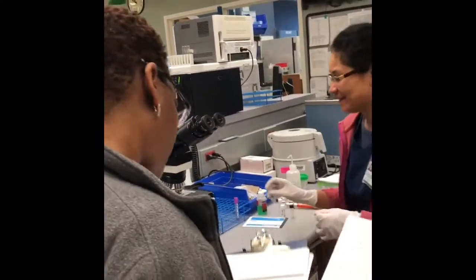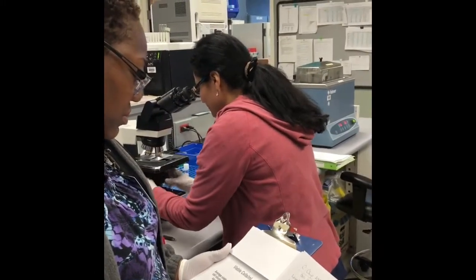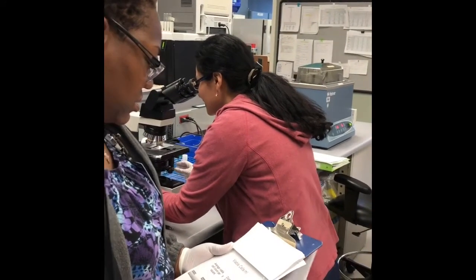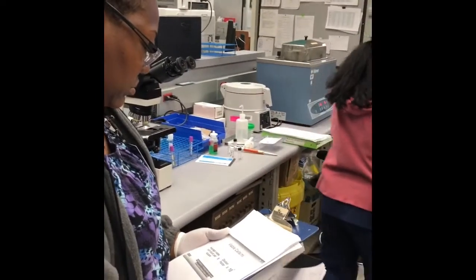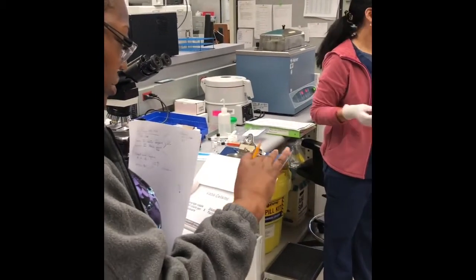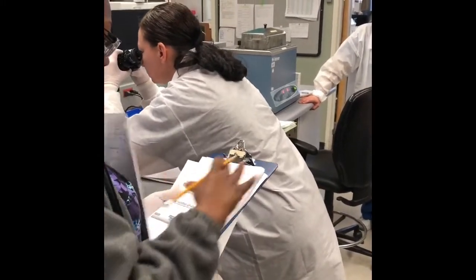Don't forget to read. I just put the regular calculation. Then we have here two WBCs and one RBC, just for this. Take a peek. And then we go for crystals, I guess.